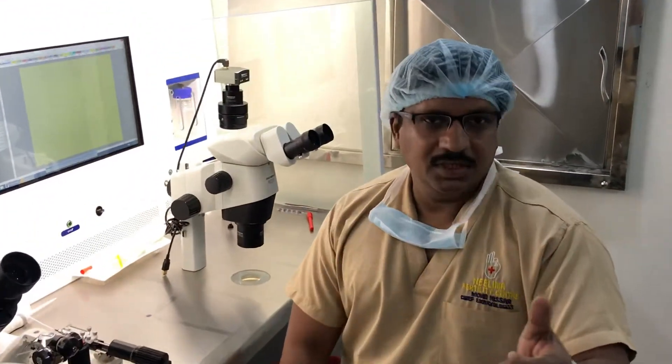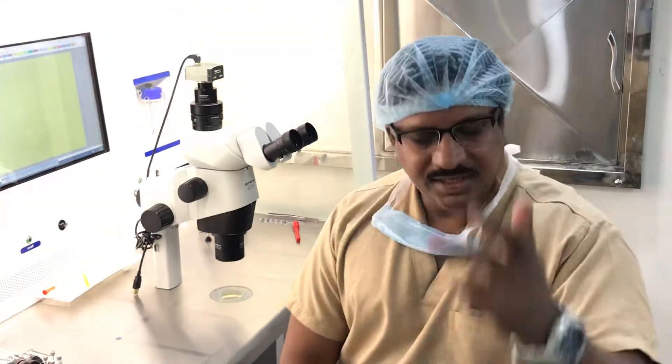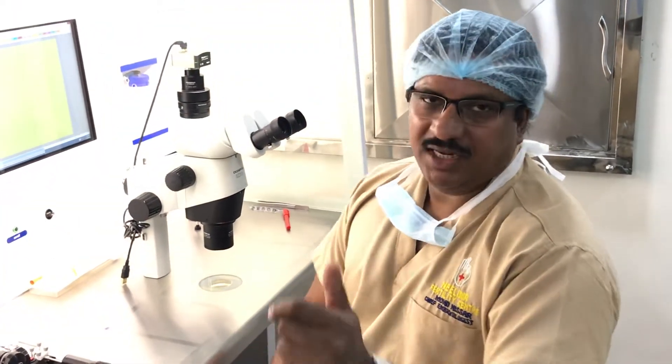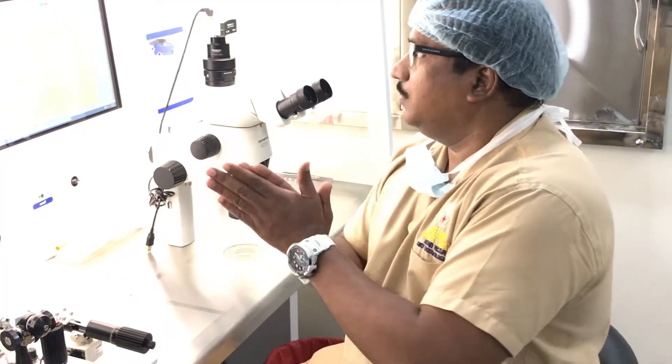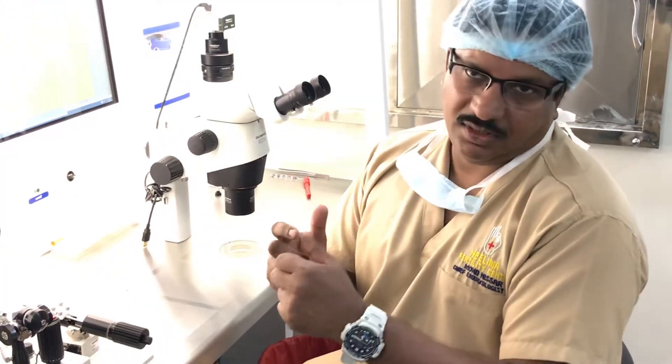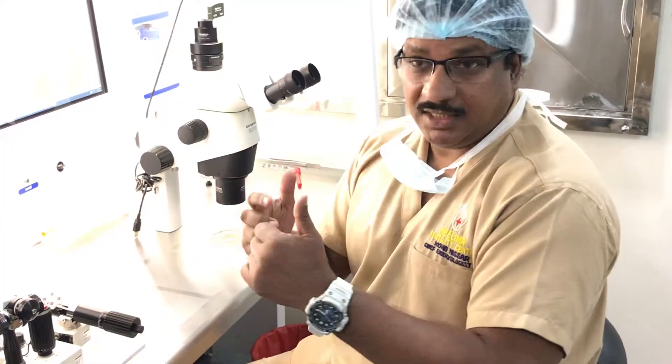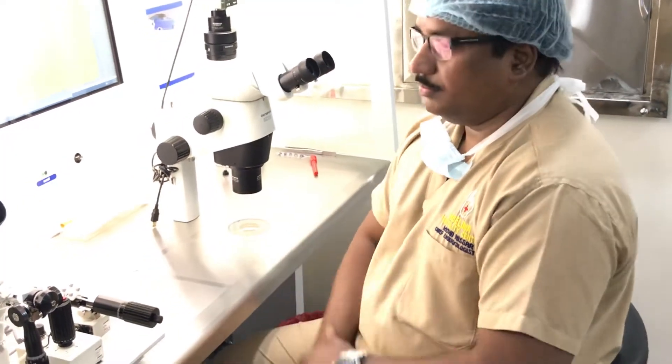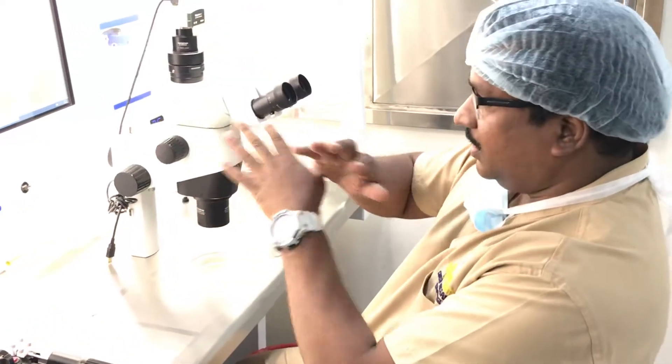Hi everybody, good morning. Today, February 23rd, 2019, we treated 10 patients. Most of my cases are blastocyst freezing only, and this morning we luckily had a bunch of blastocyst transfers. Since I'm always talking about blastocysts, I have frozen-thawed blastocysts to show you today.